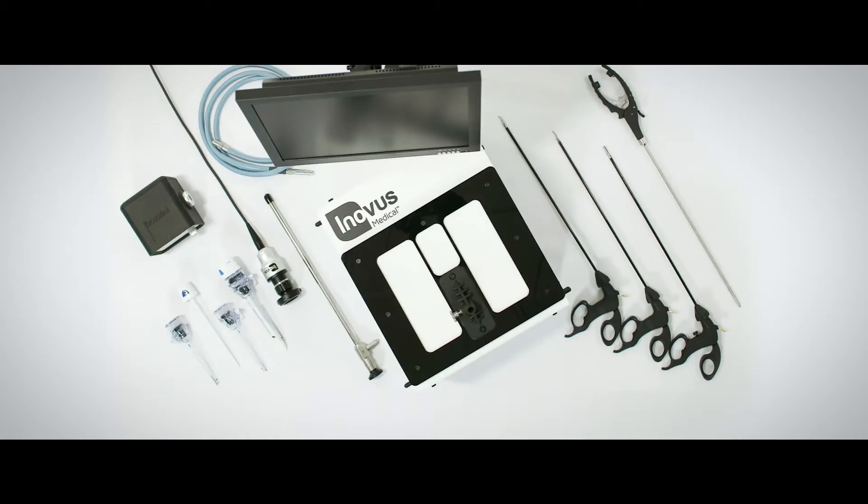The simulator itself comes with a box trainer model, four laparoscopic instruments, including a Maryland, a Johan, scissors and a needle holder.